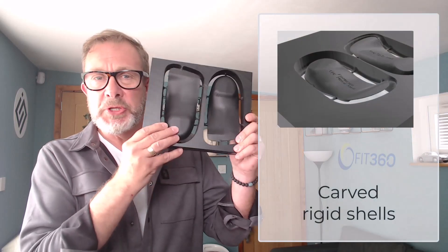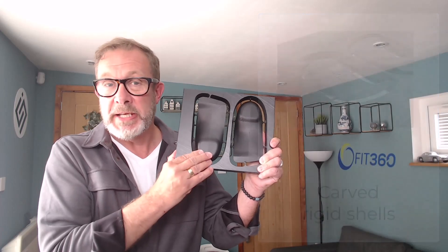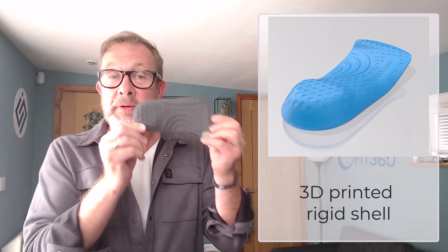One of the examples of a new feature in version 4 is the addition of blended posts. This benefits both additive and subtractive manufacturers because we can add the blended post to a machined part so that we can get faster machining with less deceleration and acceleration. We can also reduce the weight and the speed of printing in a 3D printed part by having these blended posts.